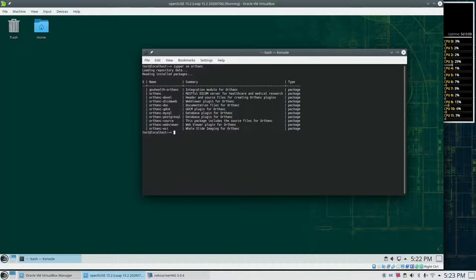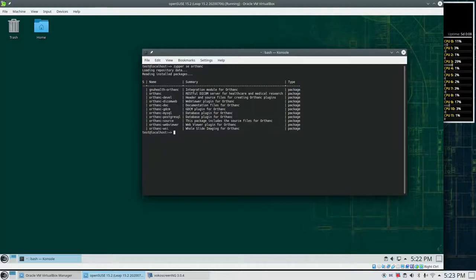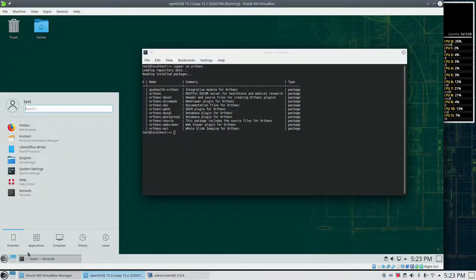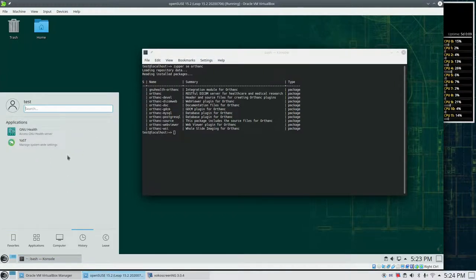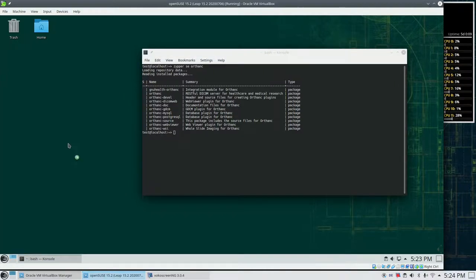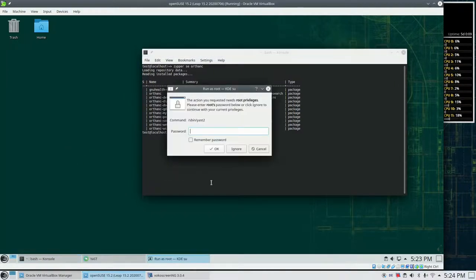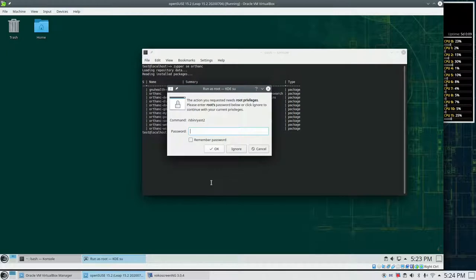It's the server and a couple of plugins. The other option that we could take to install is we use Yast, the system management tool.